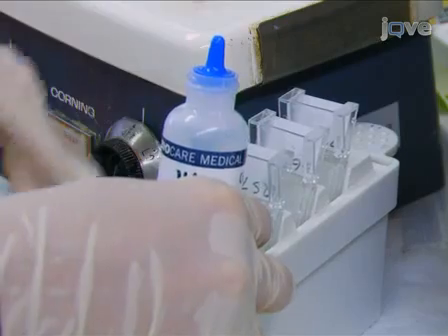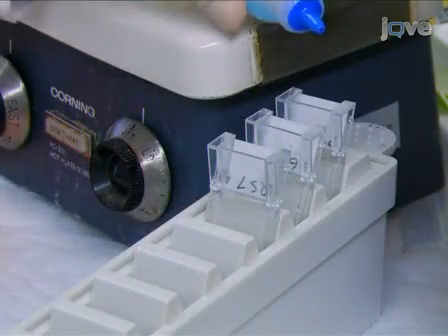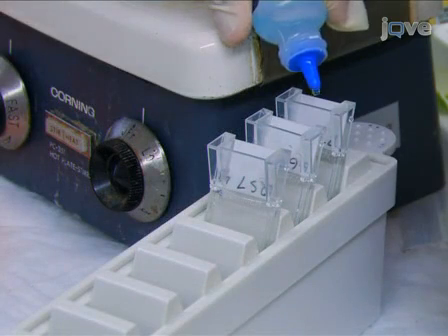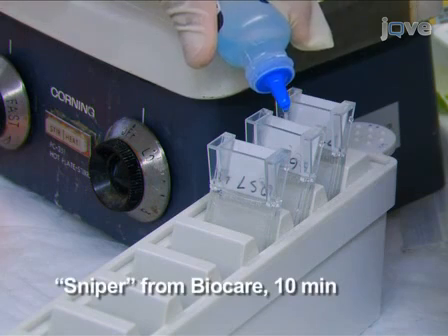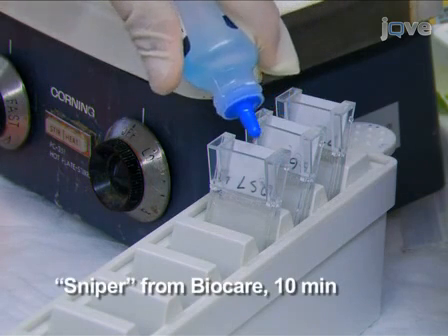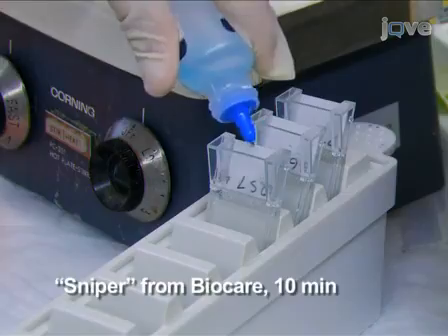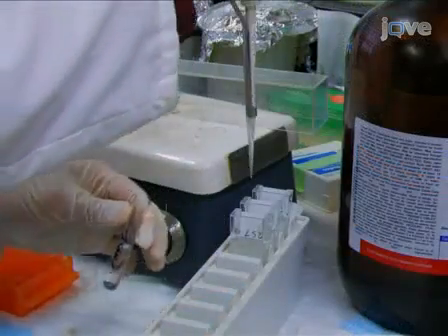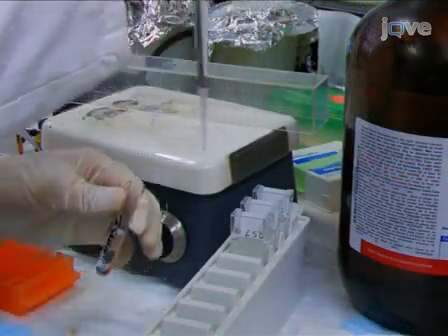The slides being stained for Pms2 or ERCC1 are then exposed for 10 minutes to an added treatment of 3 drops of a proprietary solution called Sniper, which acts to reduce non-specific staining of background proteins. After rinsing with TBST buffer, the slides are incubated with the antibody to Pms2.